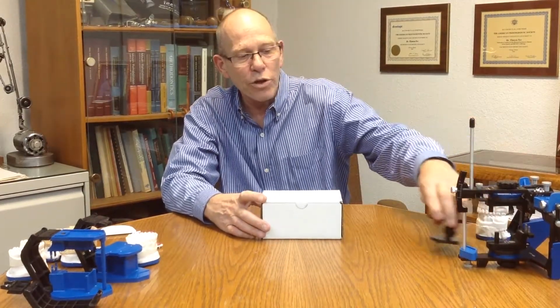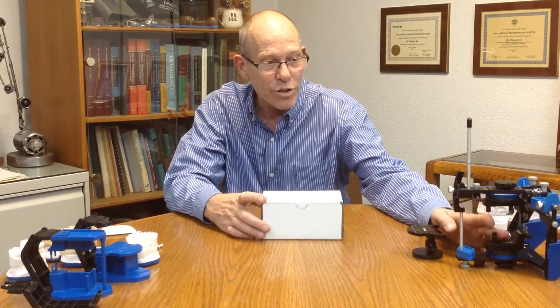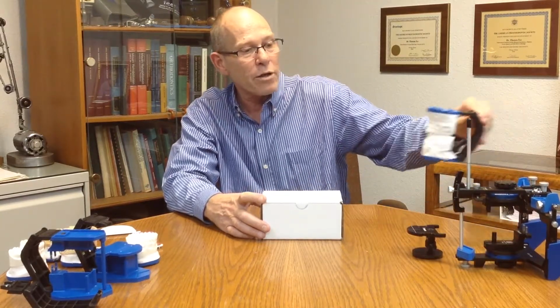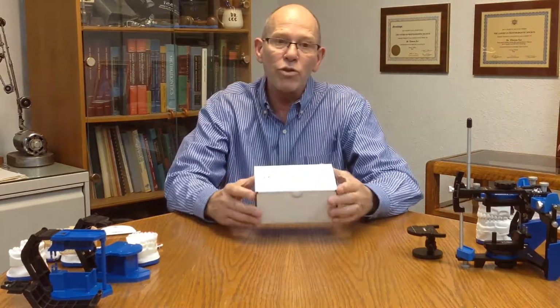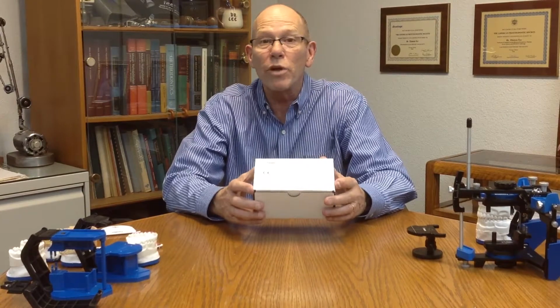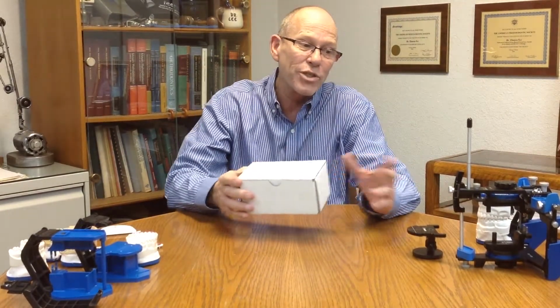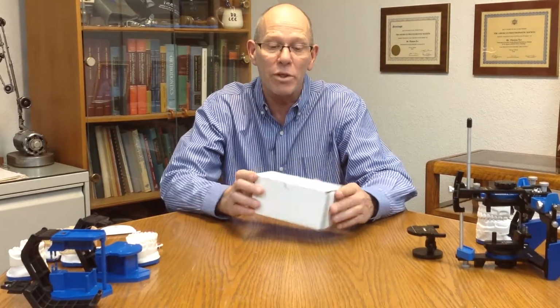In part 1 I went over the COI system and the relationship of the axis and incisal distance. I also showed a little bit on how we created the digital transfer adapter for 3D printed models and how we use the PAL articulator in conjunction with the full-size articulator. The PAL 2.0 is designed more for simple everyday dentistry. It is not necessarily compatible or interchangeable with the full size. It is designed for simple MIP dentistry.